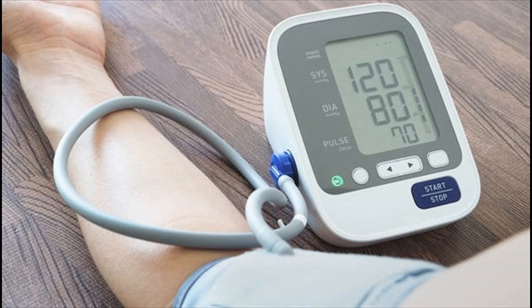Step 10: Finally, you should inform the patient of their reading and thank them. If, after re-checking, the blood pressure remains elevated, advise the patient they will need this repeated in future, which ensures appropriate follow-up.